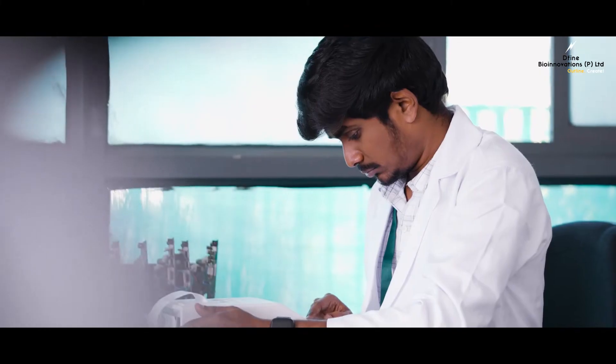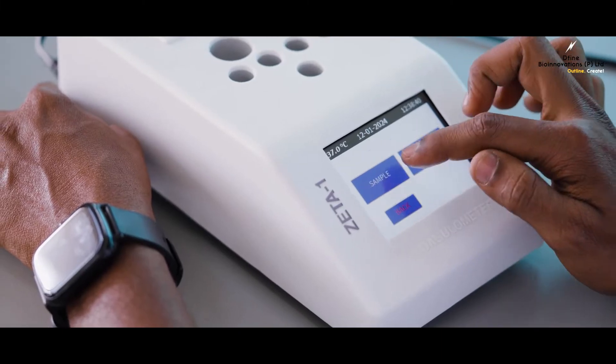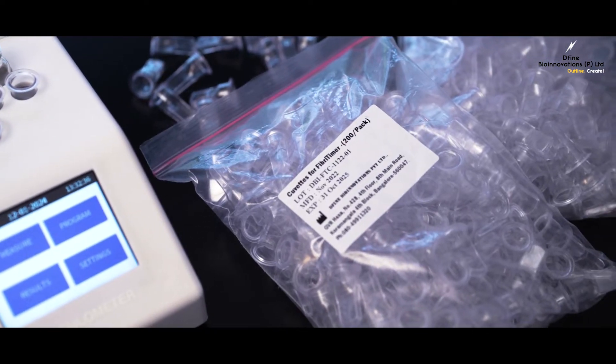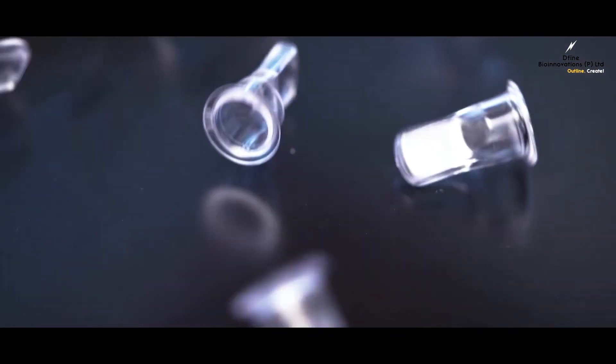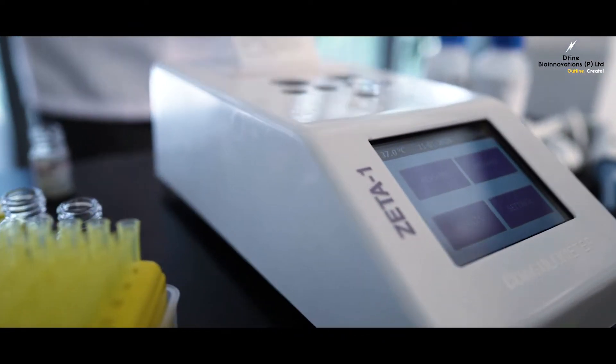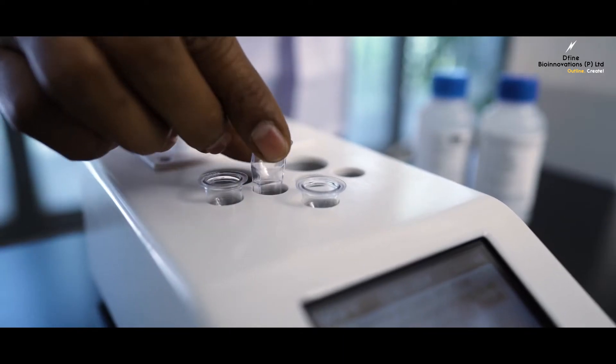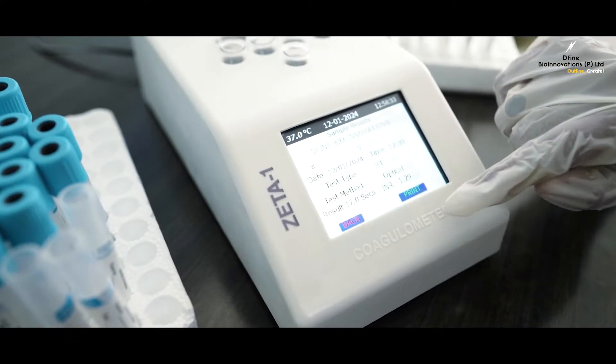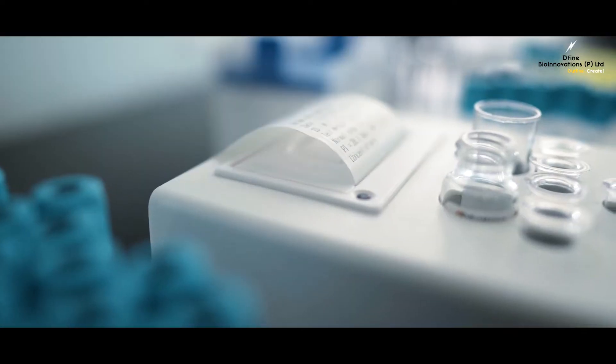Featuring a 3.5-inch touch-capacitive screen, user-friendly menu options, a single-use disposable cuvette to perform all coagulation assays, optional automated pipette for precise clot activation, and a built-in printer for convenient hardcopy printouts.